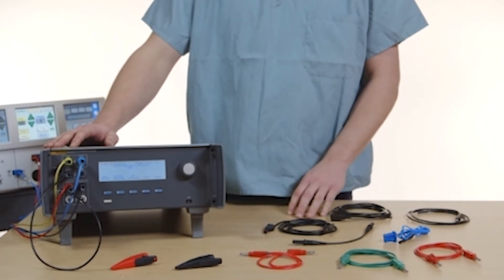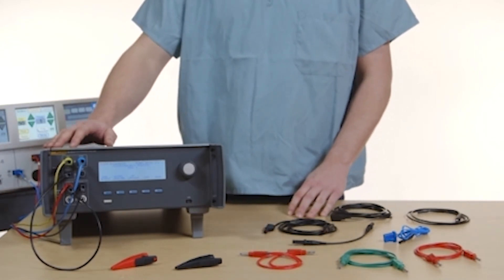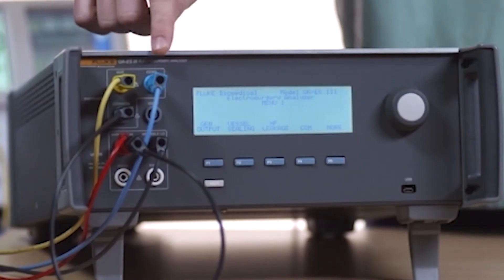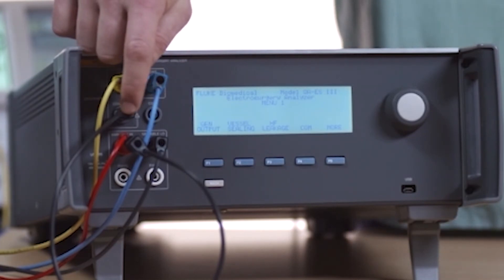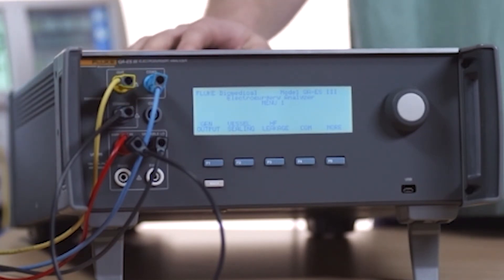As previously mentioned, the QAES3 has connections for cut and COAG footswitches and common. The footswitch feature is available during all measurements and CQM tests.